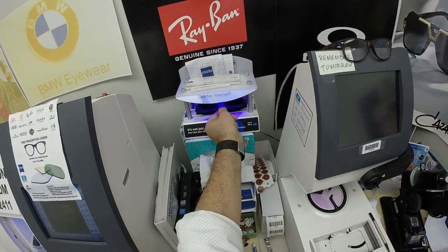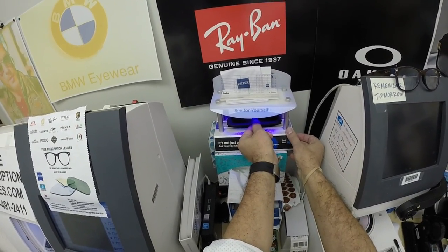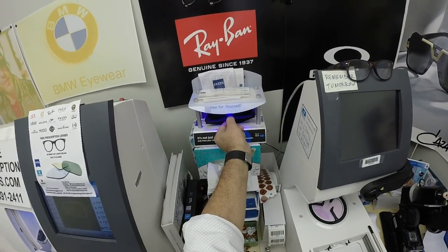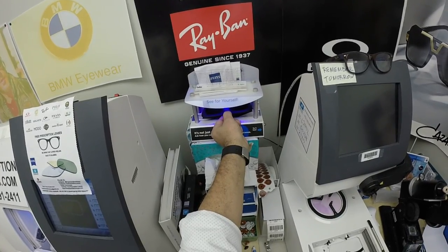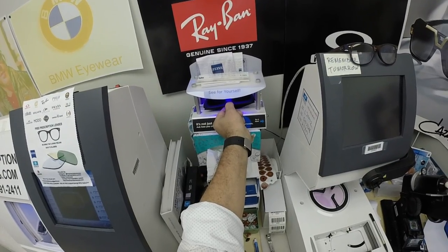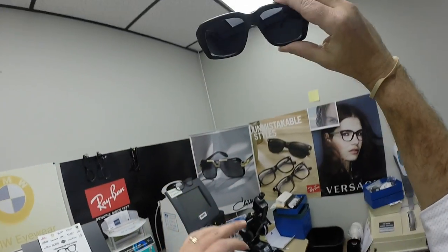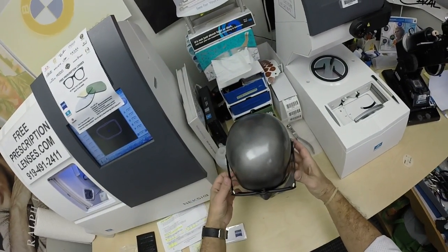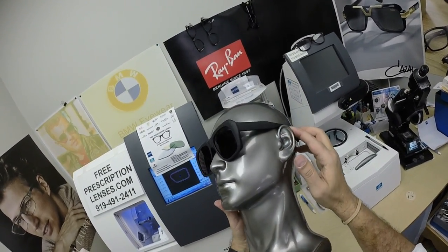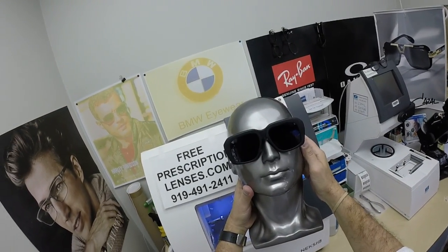Now, this is important — everyone pay attention. All photochromic lenses get dark on day one and continue to darken every day for the first couple weeks they're exposed to the sun. After that, they will work for years at maximum performance. The only time they won't work perfectly is if you're behind the windshield of a car — your windshield absorbs the sun's harmful ultraviolet rays, and that's why they won't turn dark in a car. These new Photofusion X-Edition will get up to 30% dark behind a windshield. They're also temperature sensitive, meaning they get darker when it's 85°F and below than when it's 95°F and above. When it's 100 degrees outside, nobody and nothing works 100% — we all work much better when it cools off.